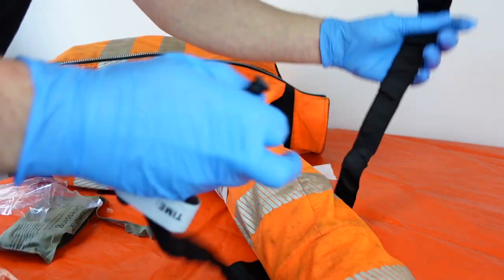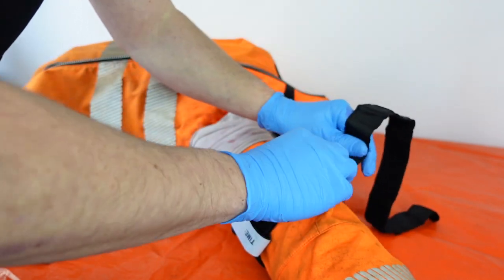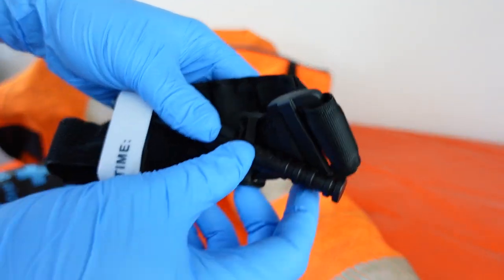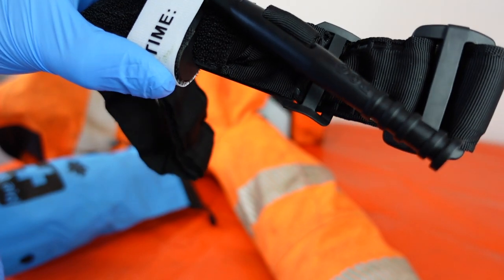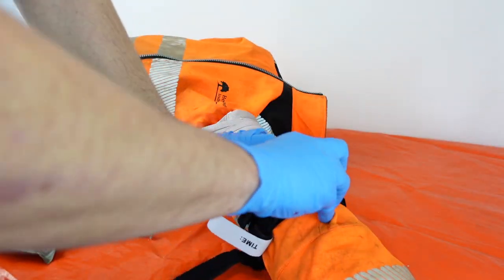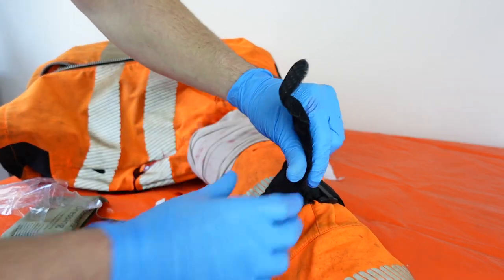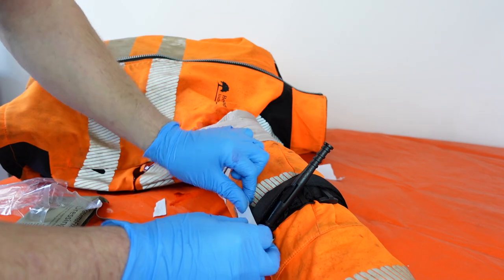The tourniquet is a staple in trauma first aid equipment and, with the correct training, saves lives and limbs if ever needed. The Native kit comes with the latest version with updated rigid handles. In addition to the kit, it's advised to seek professional training. Although I'm trained to use this equipment myself, I'm not an instructor and this video is just an insight into how some of the products work. Having a rehearsed rescue plan, emergency procedures, and trained staff will mean that equipment can be used to its full potential.